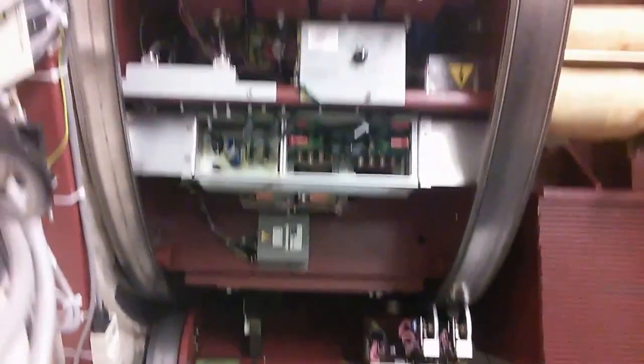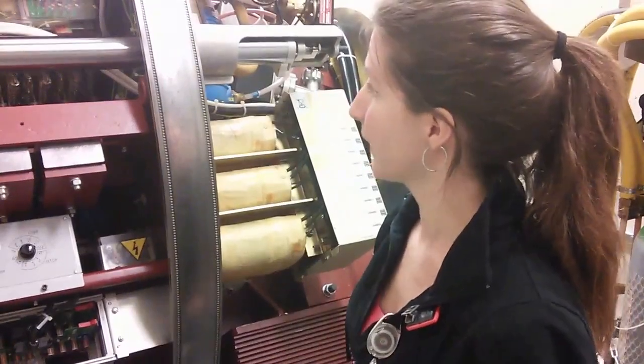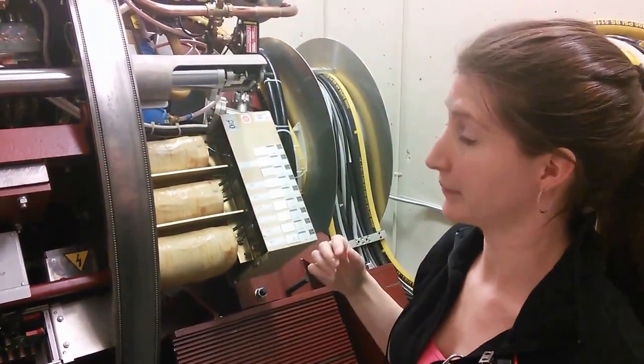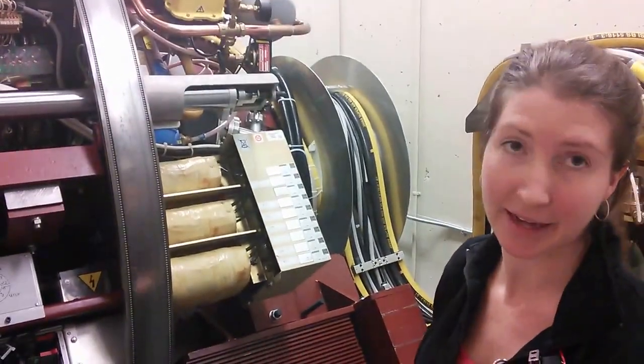This is the rotation assembly for the LINAC — this is how it spins on the wheels. It's all set up by different areas. So there's a radiation head control area — like 45 different areas of control that determine what we see in the LINAC.